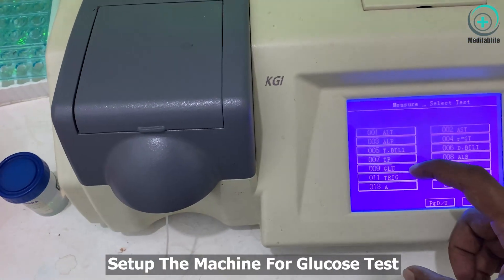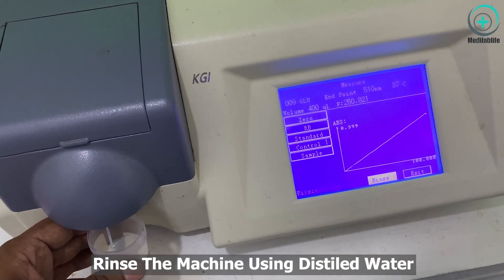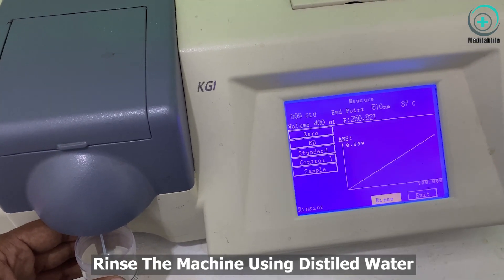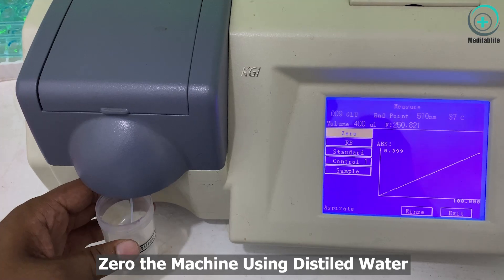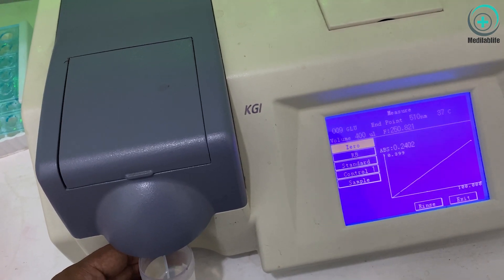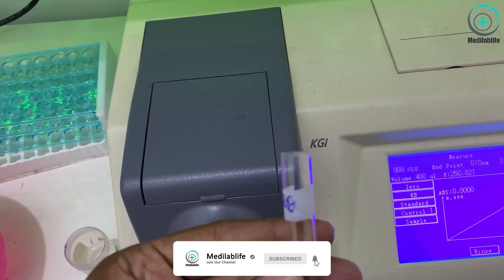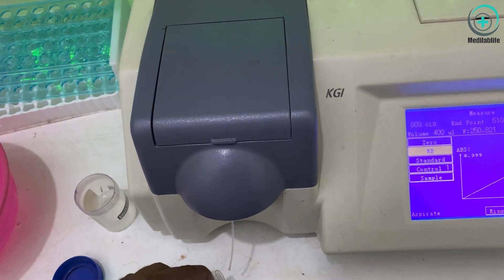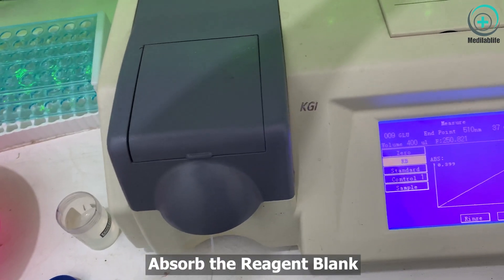Next, we set up our machine for the glucose test. Firstly, we rinse our machine very well using distilled water. Next, we add our reagent blank to our semi-automated analyzer and zero it.